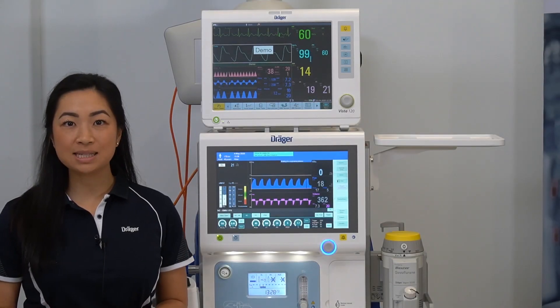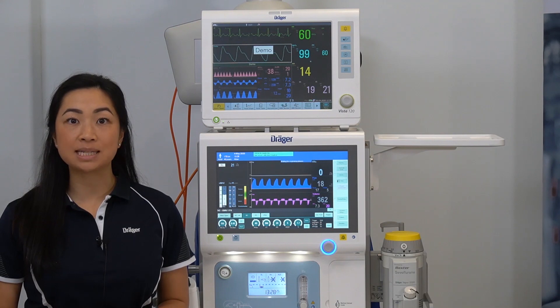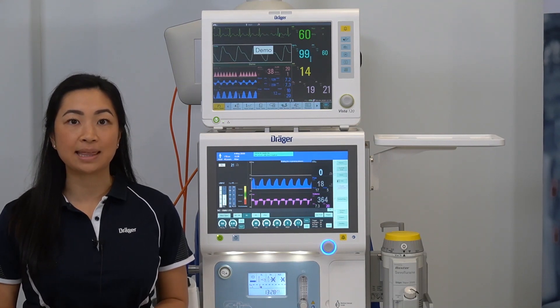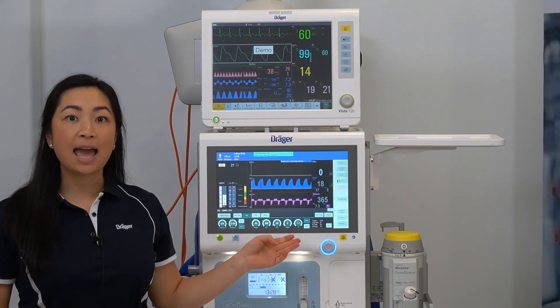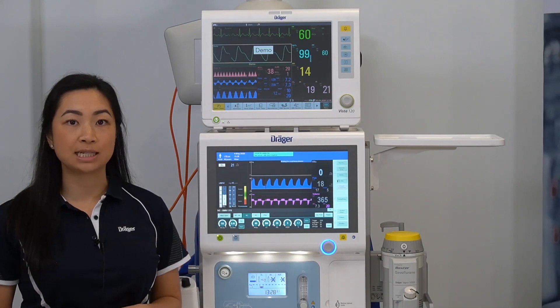Hello, my name is Samantha and in this video I'll be demonstrating the communication between the ATLAN A350 and the Vista 120 patient monitor.